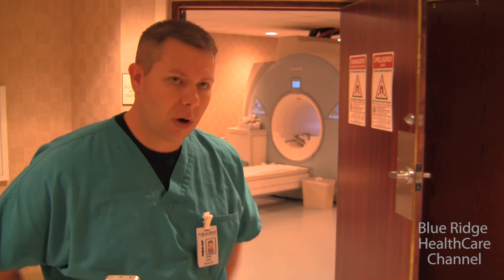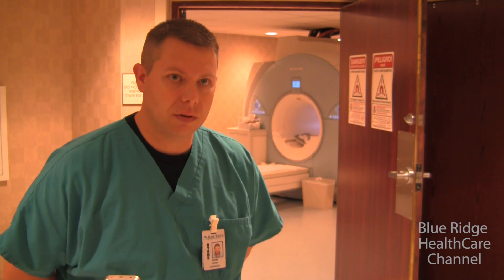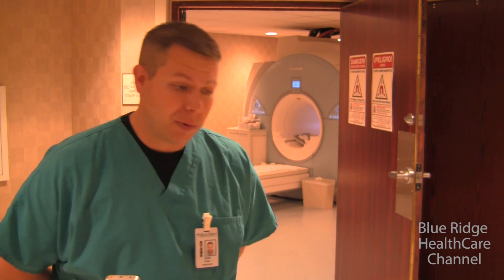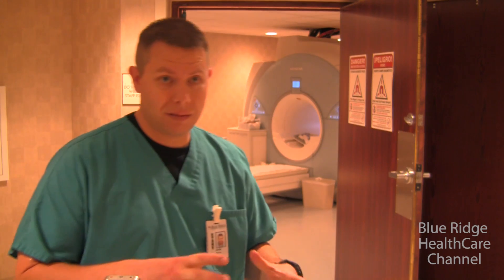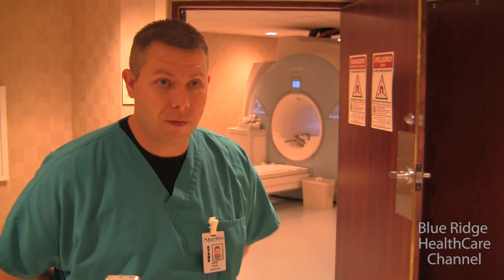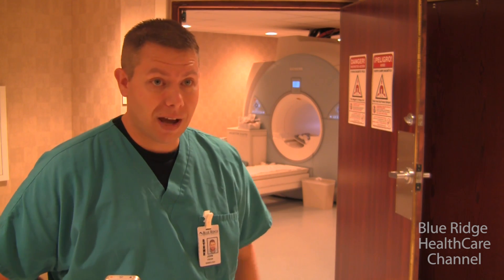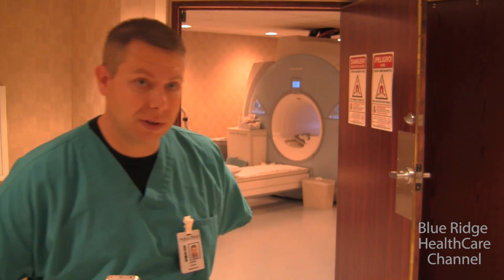For any specific body part we image — whether it's your shoulder, knee, abdomen, or brain — we have a special antenna we call imaging coils, sometimes referred to as imaging cameras. If you've seen a large plastic apparatus wrapped around someone's knee during an MRI, that's basically a glorified antenna picking up and drawing in that signal. Just like a car radio, you need a receiver, a signal, and an antenna to pull in the signal and listen to it.